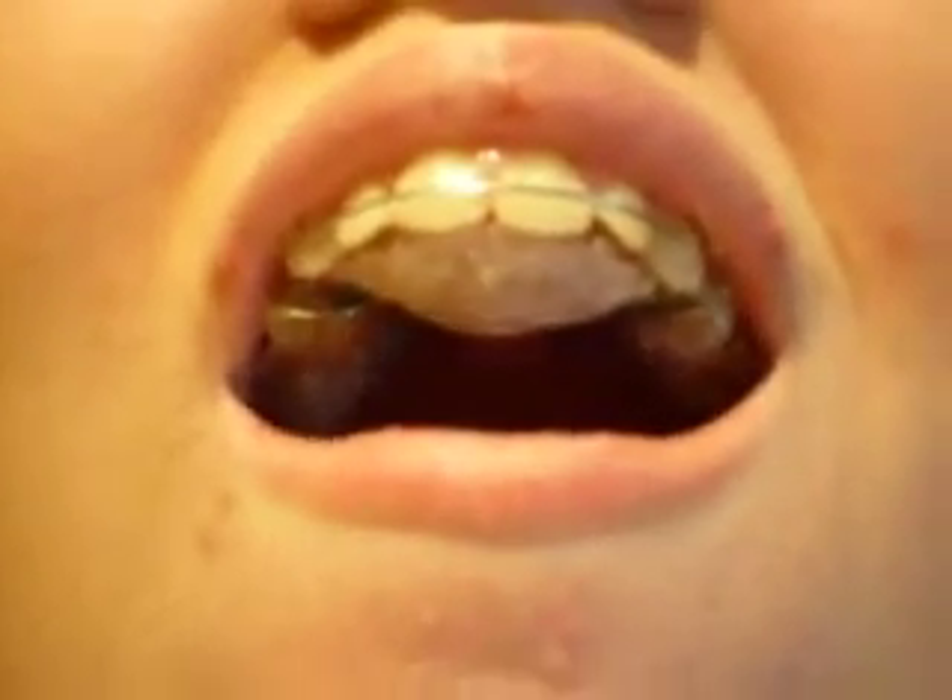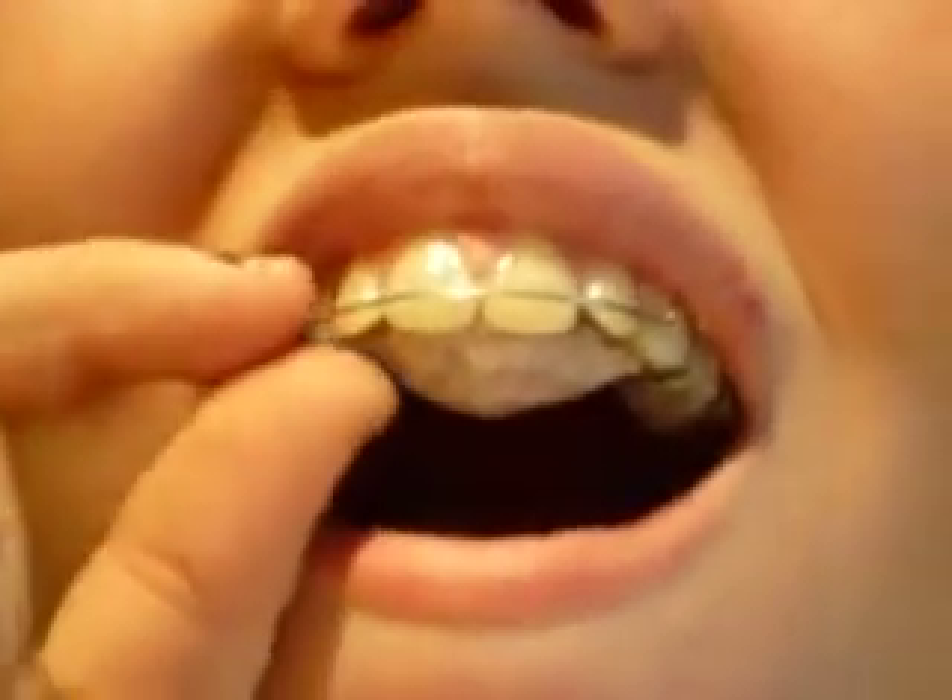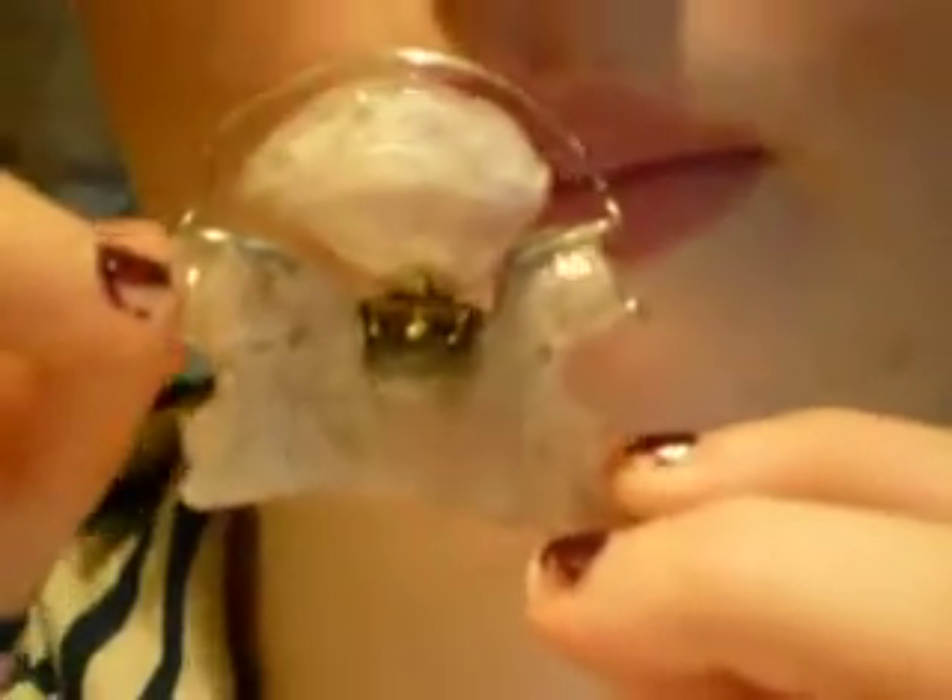Now when you take that apart, take it out slowly. Now put it back to your face and take it apart. Show me how you take it — tip it this way so we can see it. You see there's a little clasping apparatus there? Now how do you take it apart? You press the little button and it comes out.